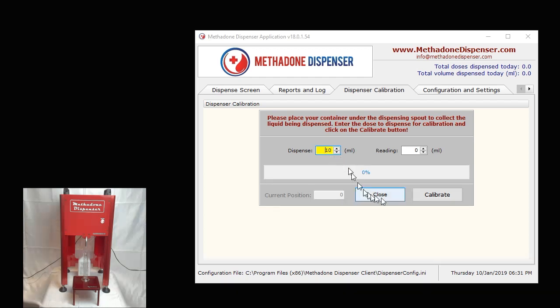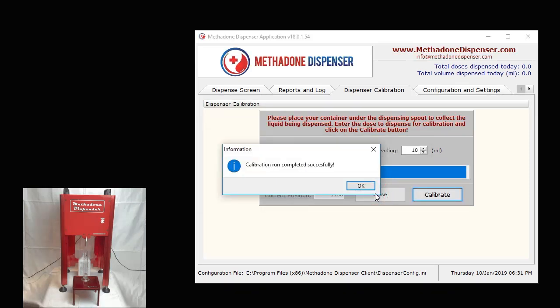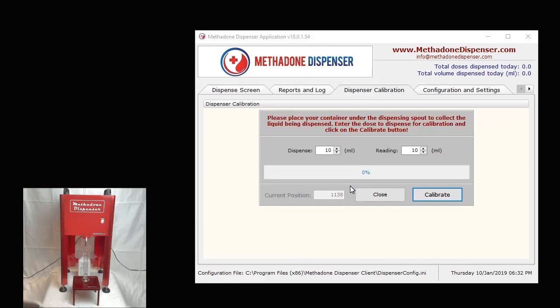So I've chosen 10 ml. I'm going to click on calibrate and it actually went and dispensed. And when I eyeball it, it definitely is 10 ml. So I'm going to enter 10 ml over here and I'm going to say OK. Once that calibration routine is completed, I'm going to click on OK, and you are prompted back to the calibration screen.